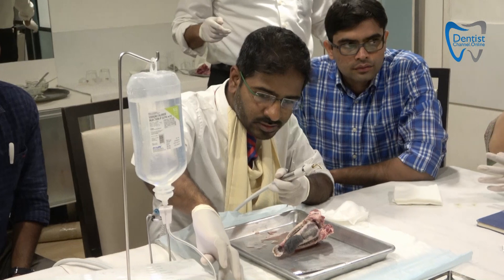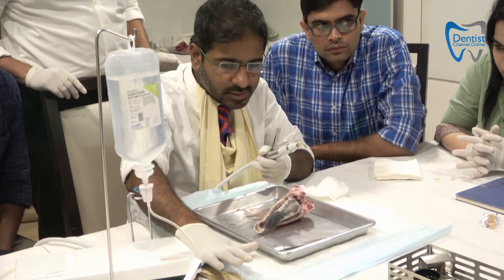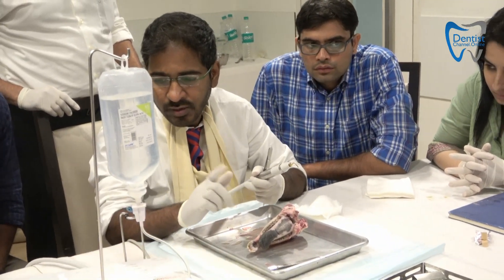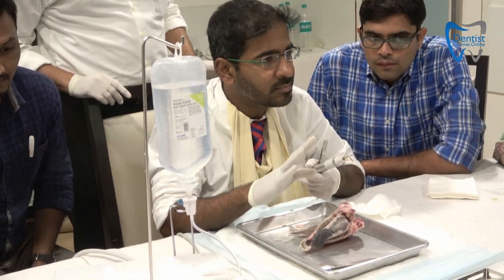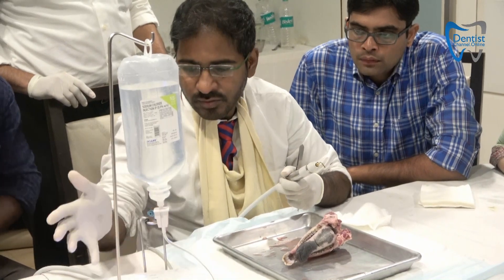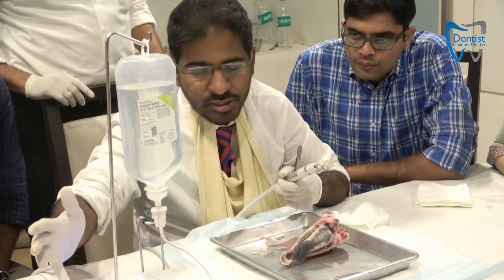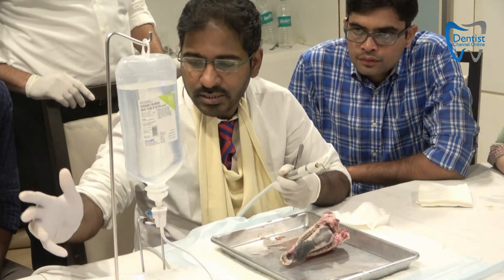Now the unit is off. Once I start, these signals will show — one by one it will identify all the connectors or assemblies and check that they are intact. If anything is wrong in any way, it will start blinking that particular indicator. And this is irrigation — whatever the amount of irrigation you are looking for, you can adjust it.